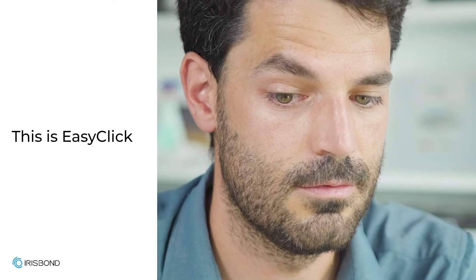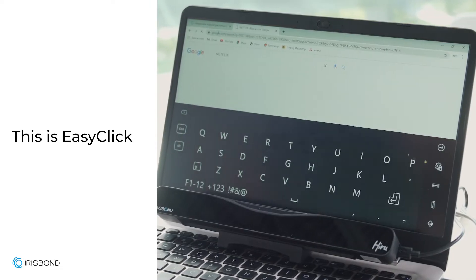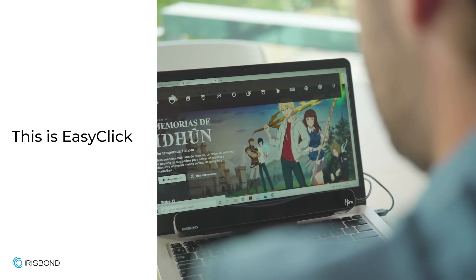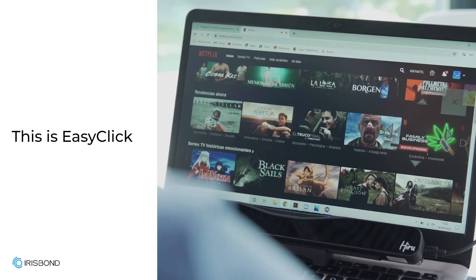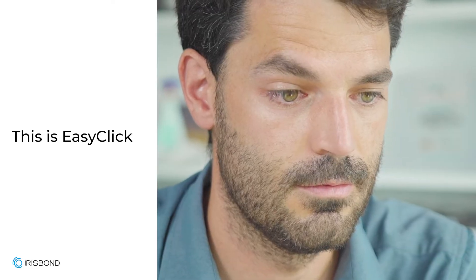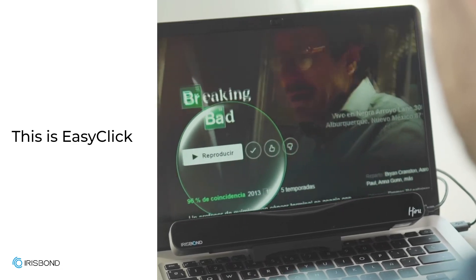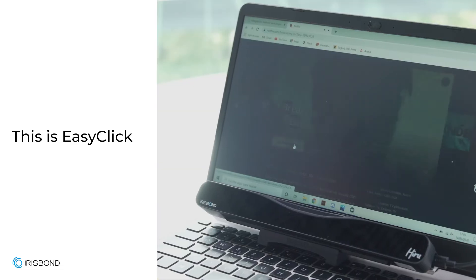EasyClick is our computer access software designed to allow the user to access all the tools and programs used by a regular mouse and keyboard — surf the internet, listen to music, draw, write, or play. It is highly personalizable and can be utilized by a wide range of eye gaze users.